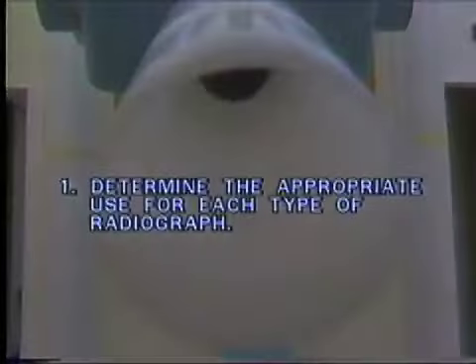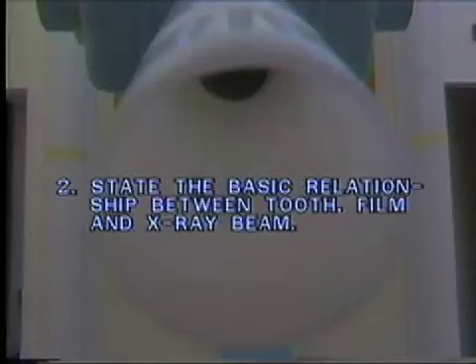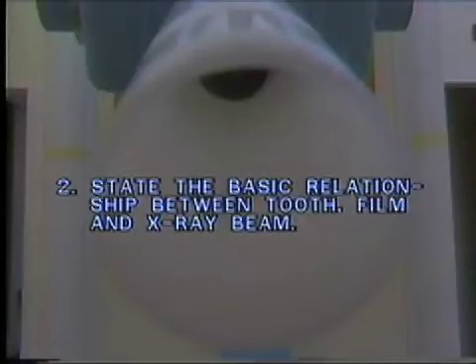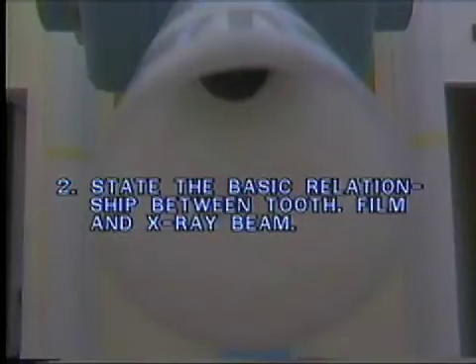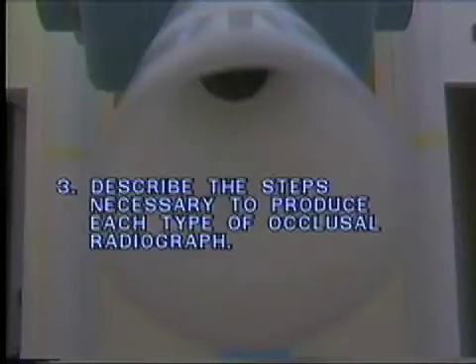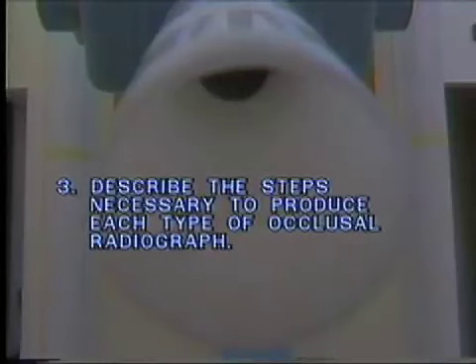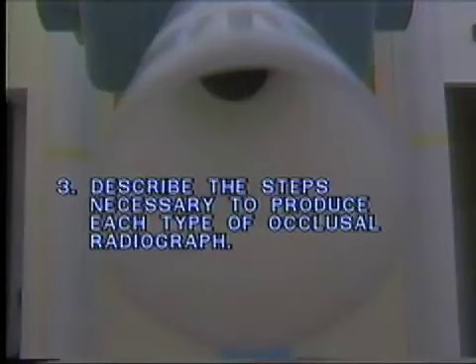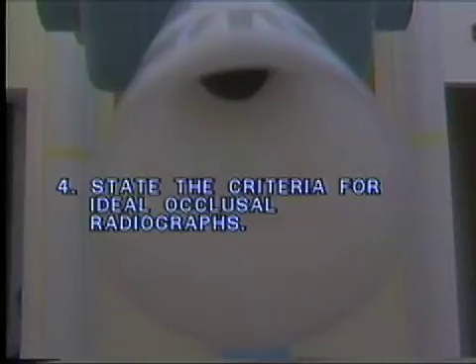This videotape will demonstrate the techniques necessary to produce four types of occlusal radiographs. At the end of this tape, you should be able to determine the appropriate use for each type of radiograph, state the basic relationship between tooth, film, and x-ray beam, describe the steps necessary to produce each type of occlusal radiograph, and state the criteria for ideal occlusal radiographs.